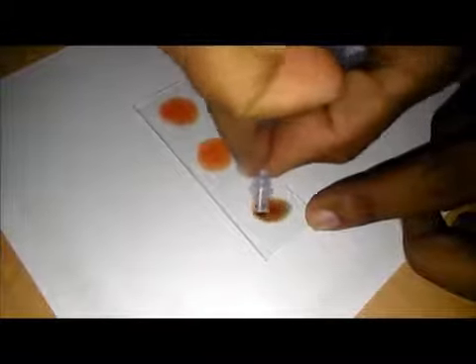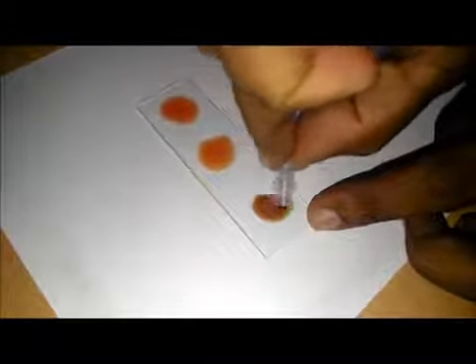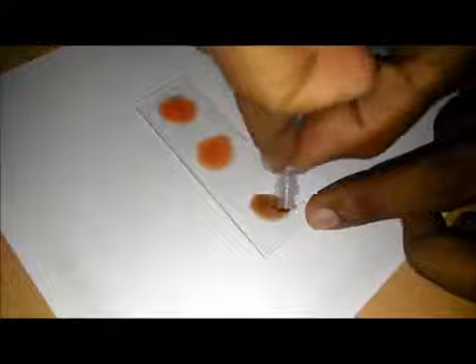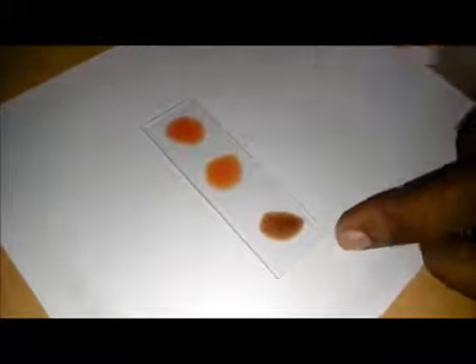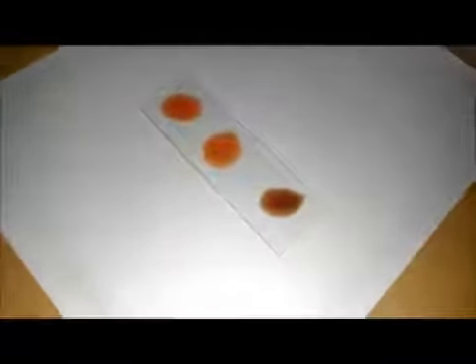So now, after some time, wait for two minutes. Shake it a little bit and then you will properly see the reaction.